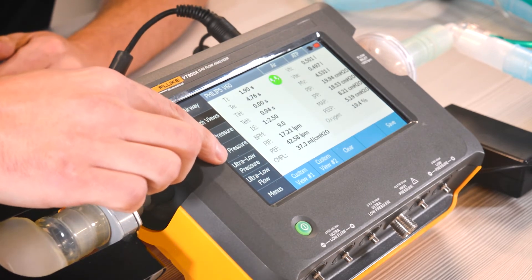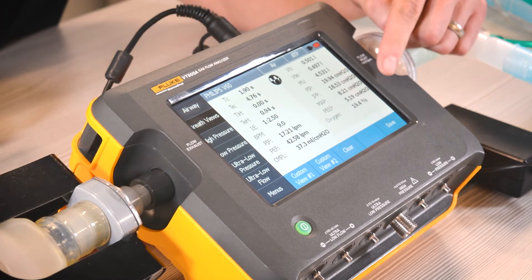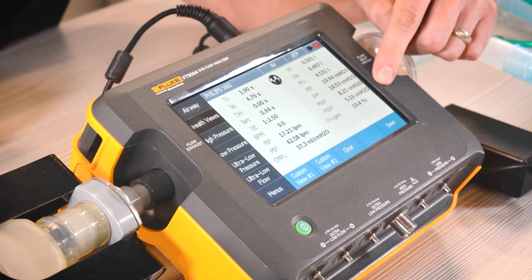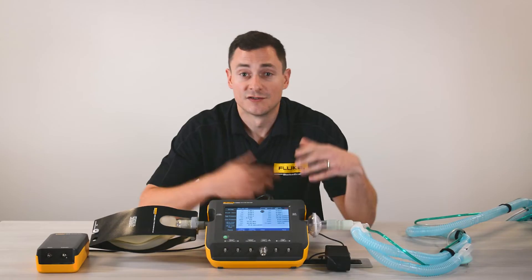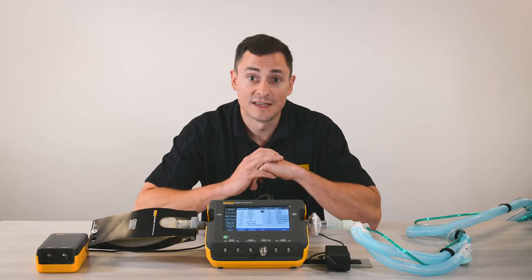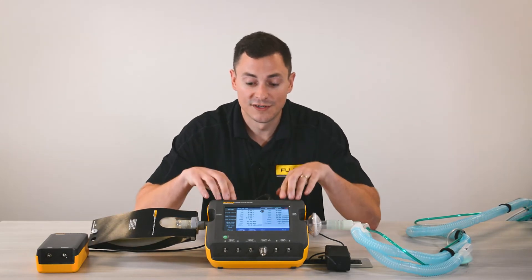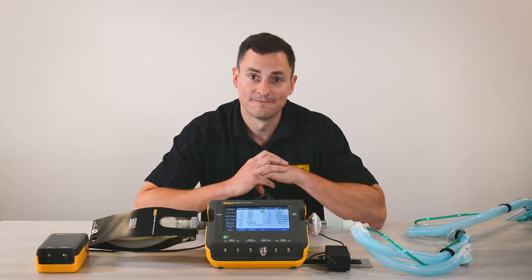Your breaths per minute are measured here, so you can get rid of that meter, and your oxygen concentration can be measured here as well. So you can get rid of all those independent test tools, put it into one aggregated unit, and see it all on one screen.